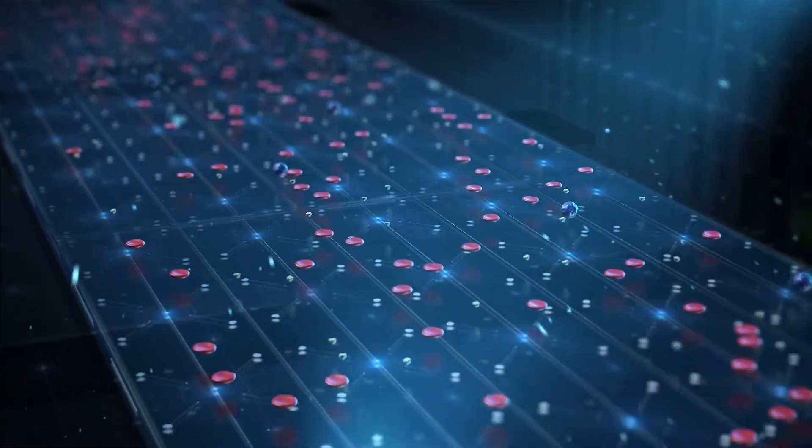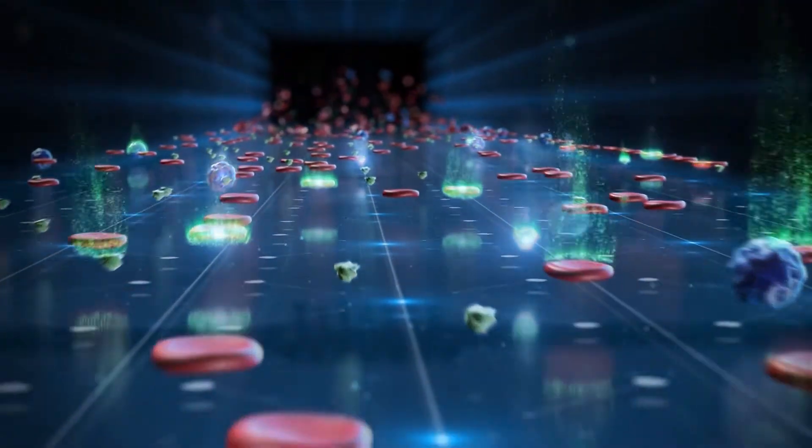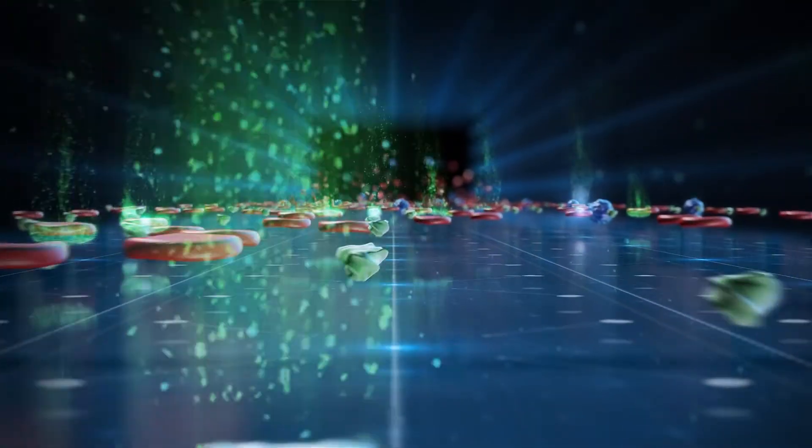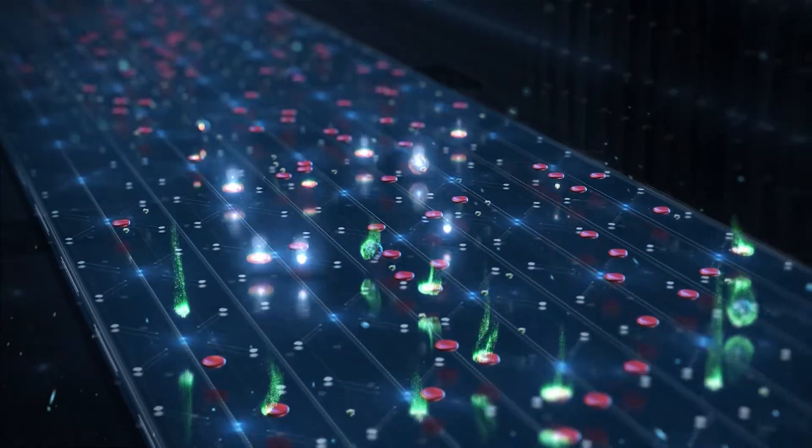Images of the focused cells are analyzed using cutting-edge machine vision algorithms. Cells are differentiated based on their morphologies and staining properties.